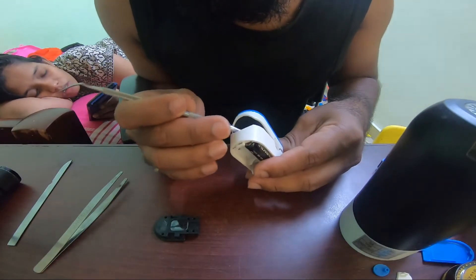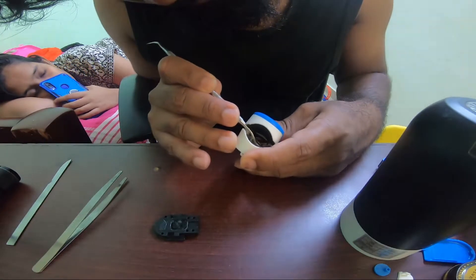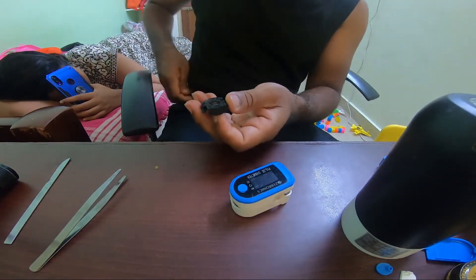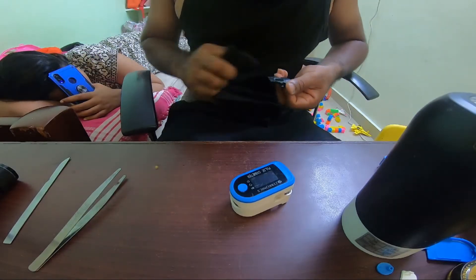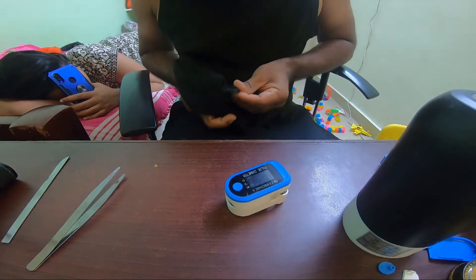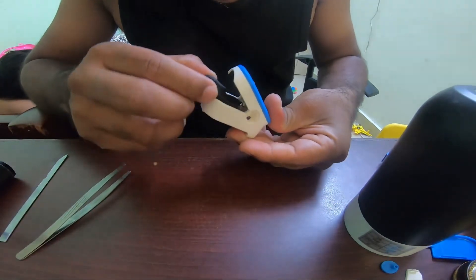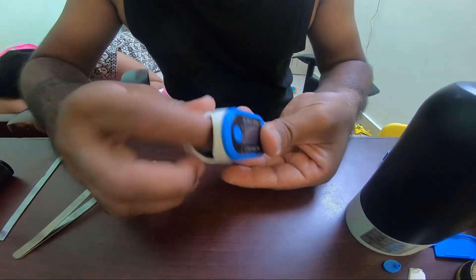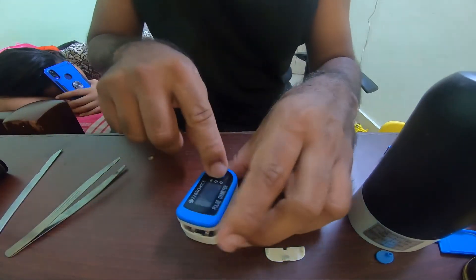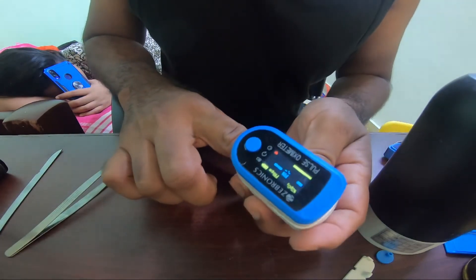All you need to do is pull back and slip it inside the guide. Now you want to put the sensor housing in — just clean it before you put it in, clean the lens. It slips in easily. Then put the batteries in to check if it's functional. Yes, it works — it says 'finger out', so put your finger in and it starts sensing.